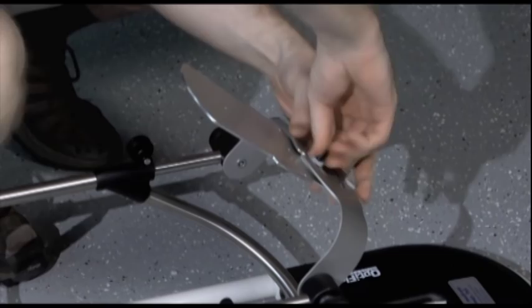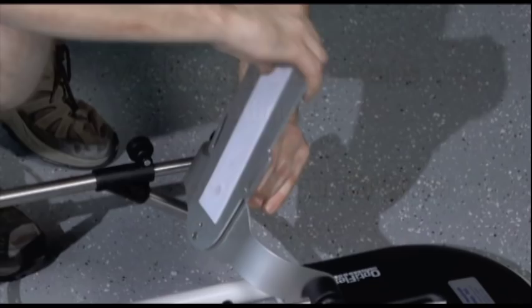Most modern CPM machines have a pediatric footplate for very short patients. By following the simple steps outlined in the video, you can convert your CPM for pediatric use.